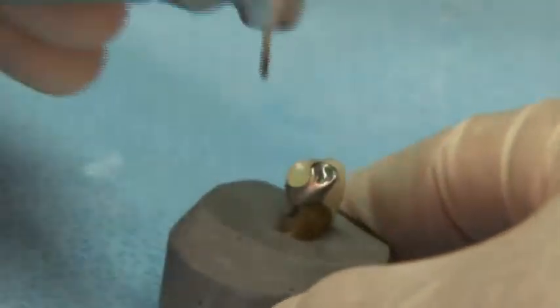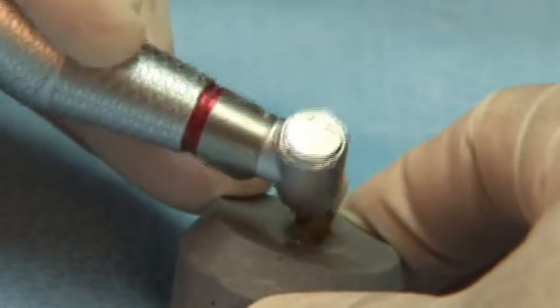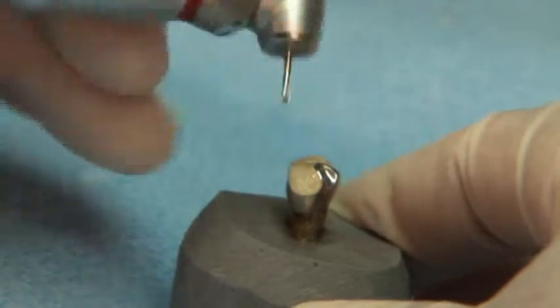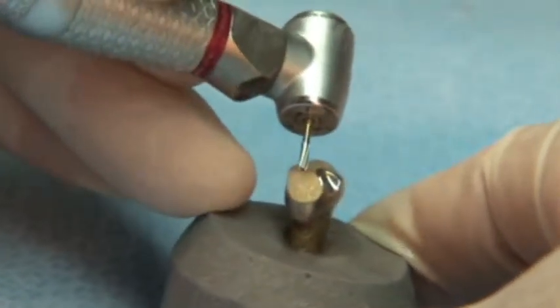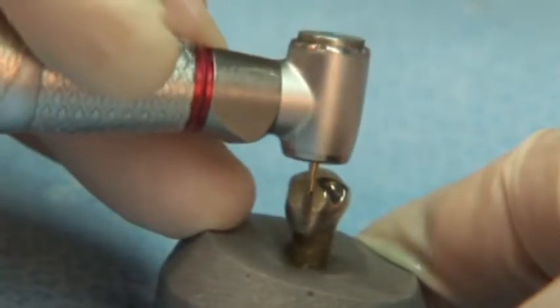The Great White Gold Series is the number one selling crown removal burr worldwide and continues to be the only operative carbide burr to receive the prestigious five-star award from Reality Publishing Company.